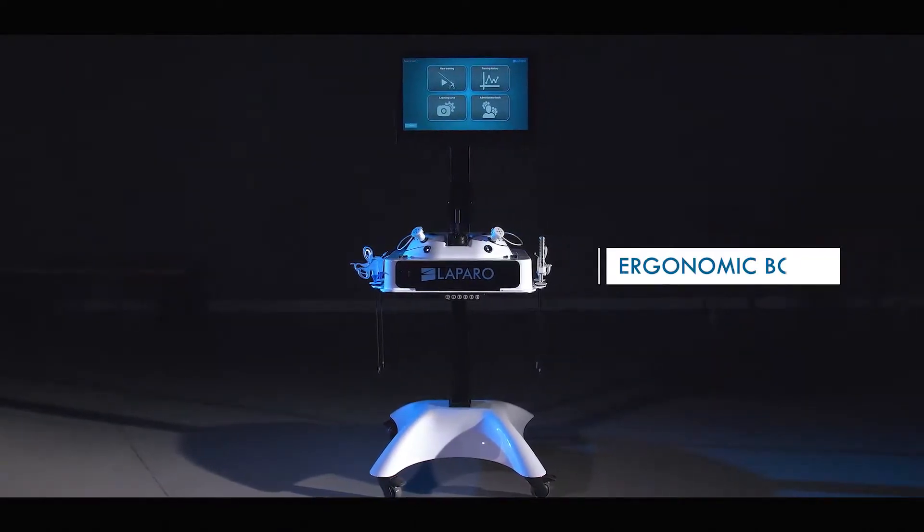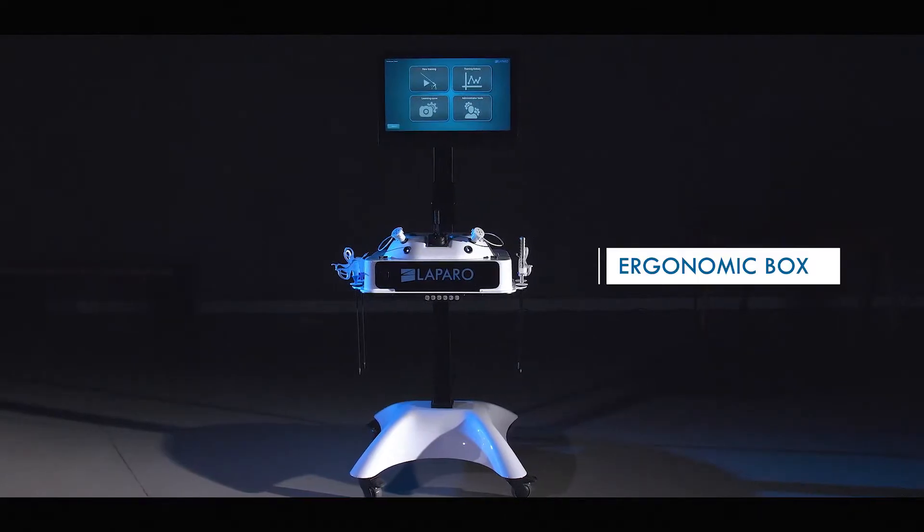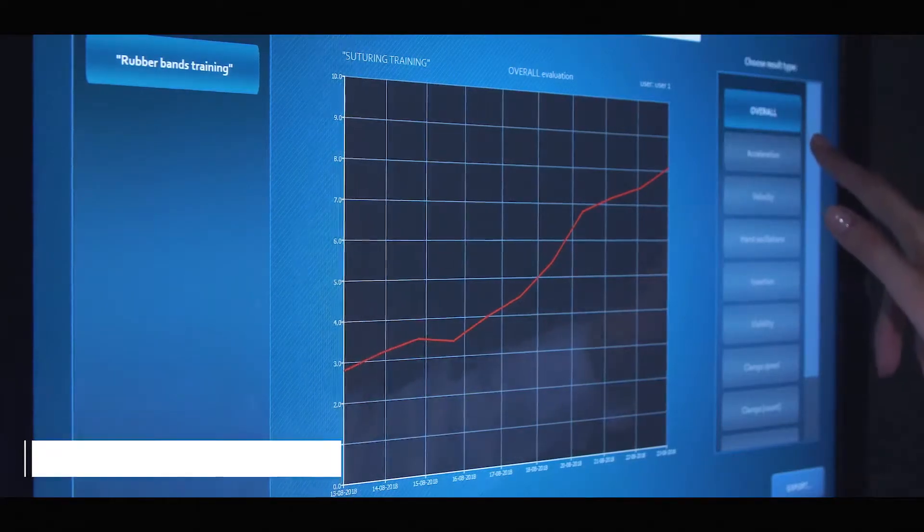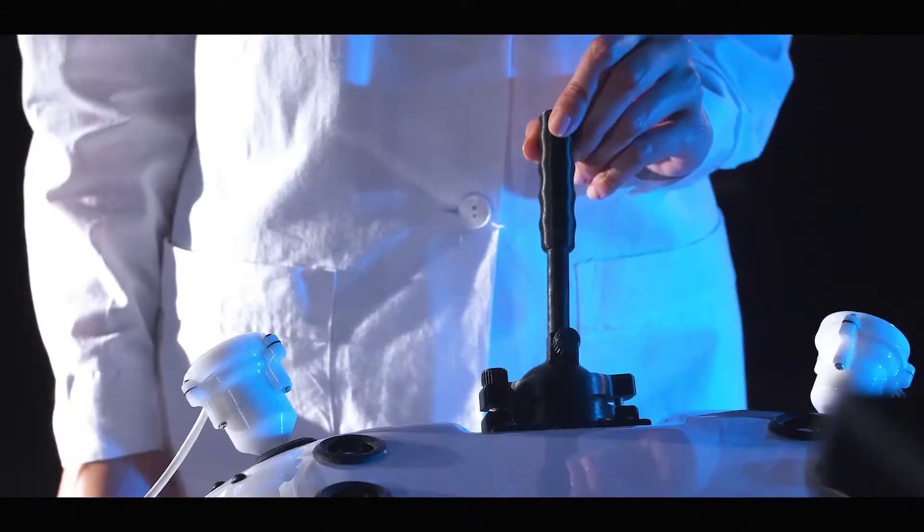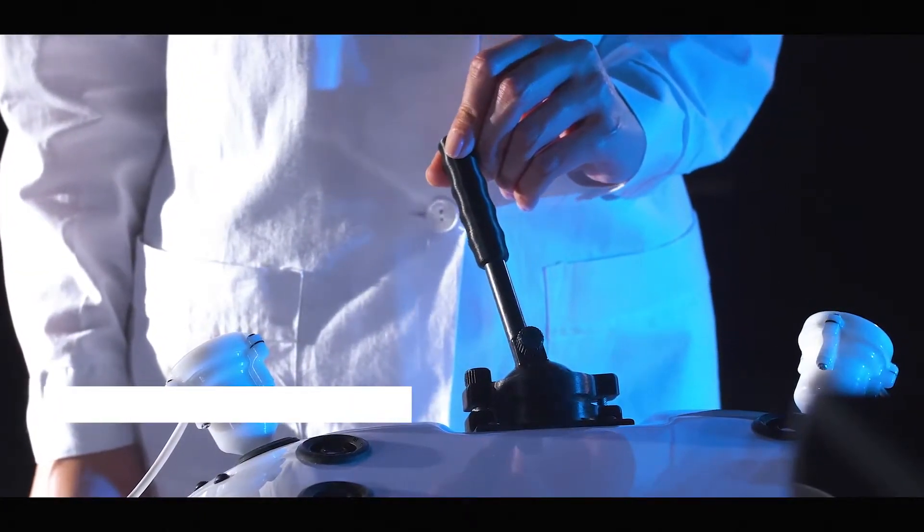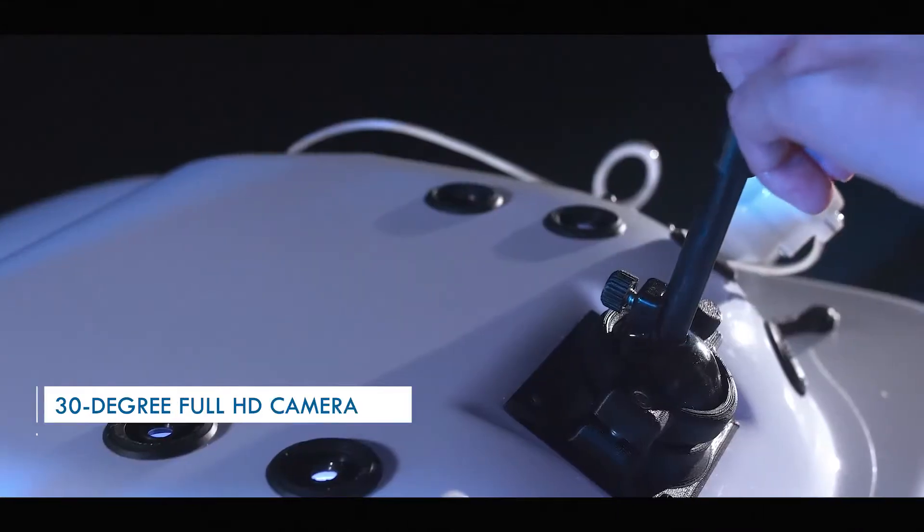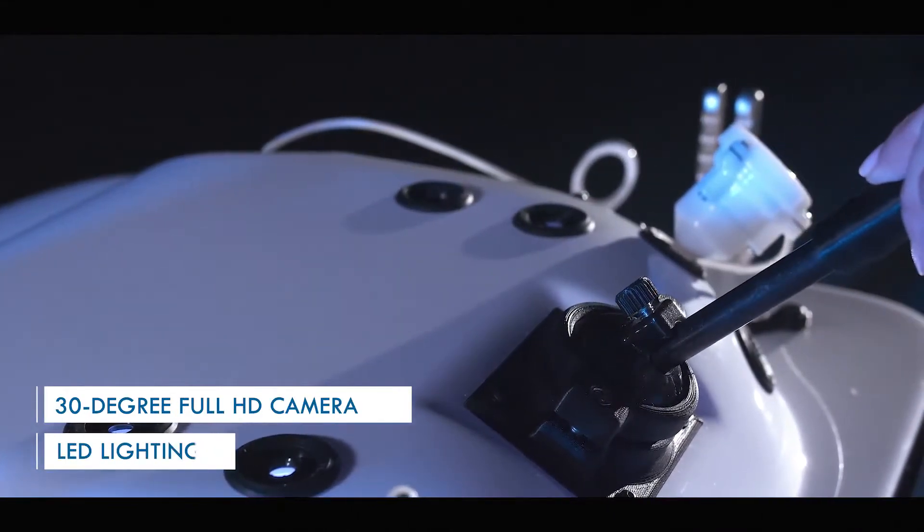LaparoAnalytic is an integrated training station with an ergonomic box and touch screen computer. Inside we will find a 30-degree full HD camera with position blocking functionality and LED lighting.